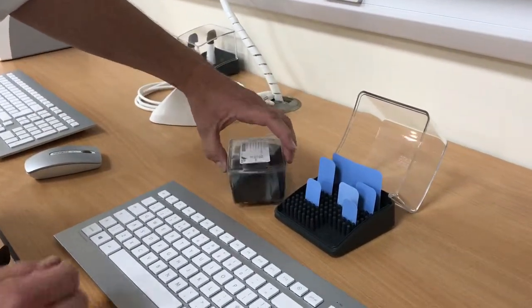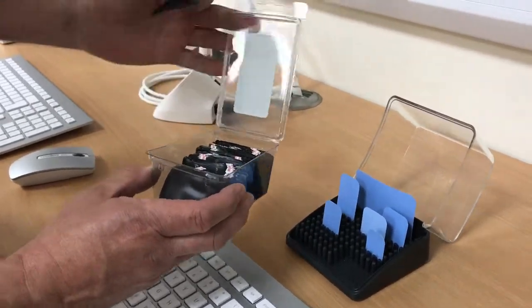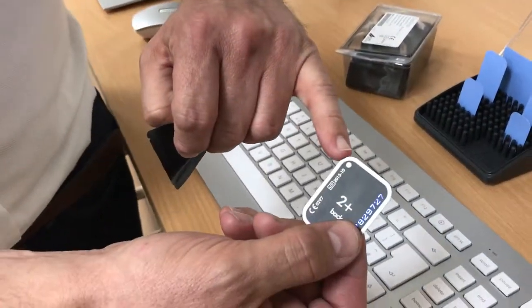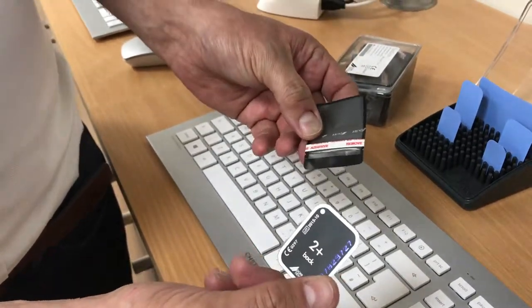When you're loading your image plates into the barrier envelopes, it's important that it's done in the right way. So we select our barrier envelope and our image plate. You'll notice an orientation marker in the corner of the barrier envelope.